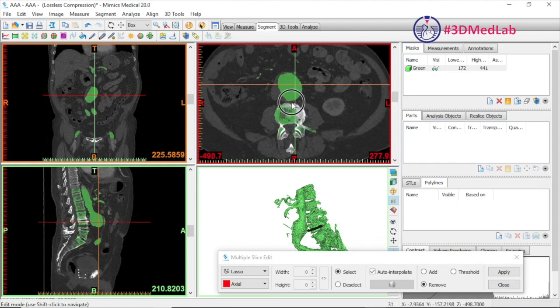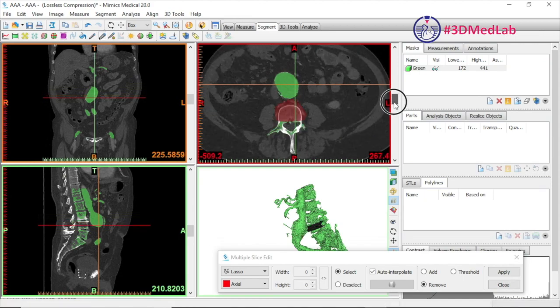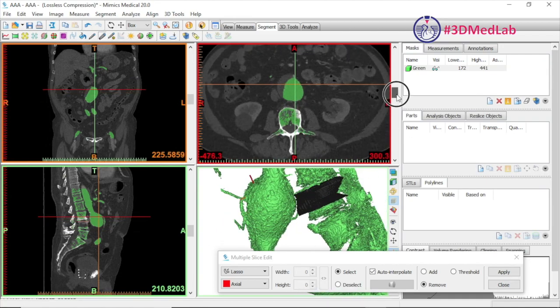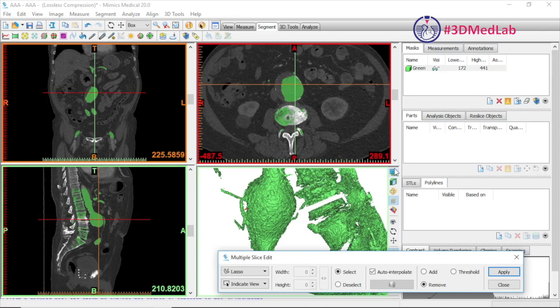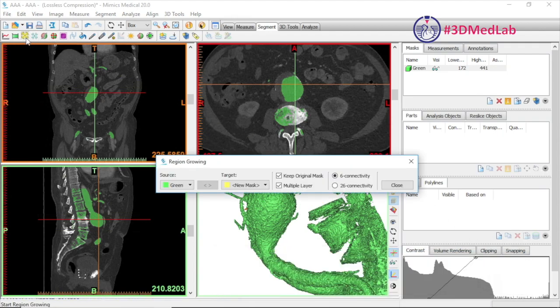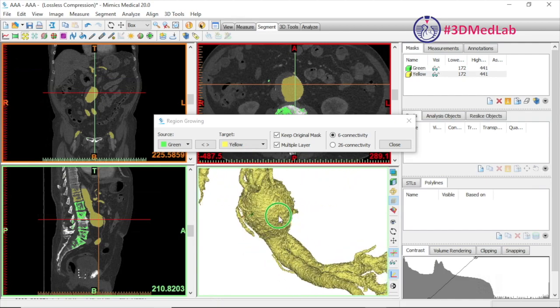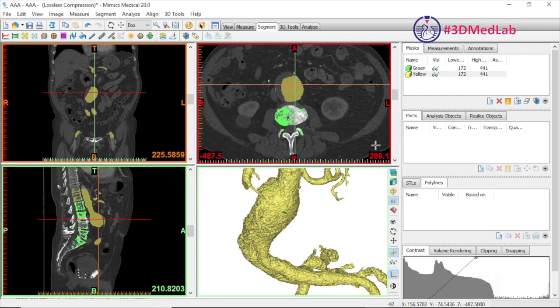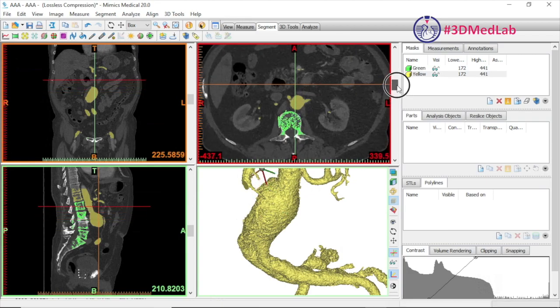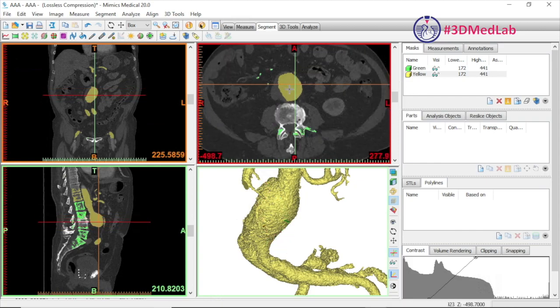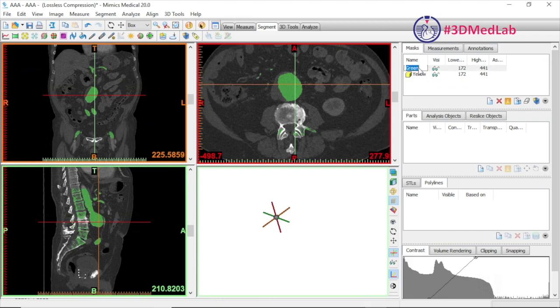We can go around and do that at multiple levels and you'll see the band will grow and get bigger. Remember to click Apply when finished, otherwise it will revert back to what it was before. Now we use the grow function to select our main aneurysm and generate a new segmentation — demonstrated here in yellow, with the old one in green. We can pan through to see which segments are in each model, and then rename these models if you like.